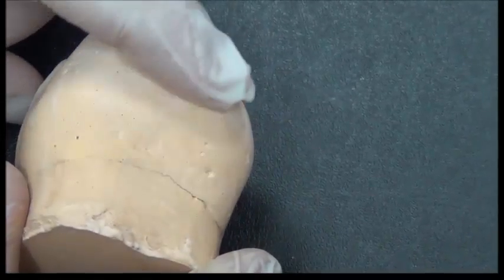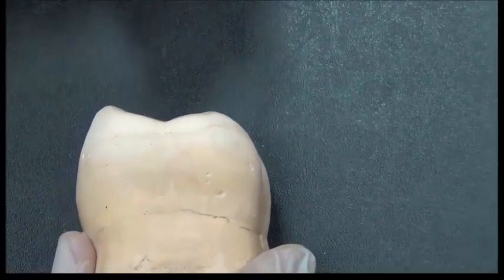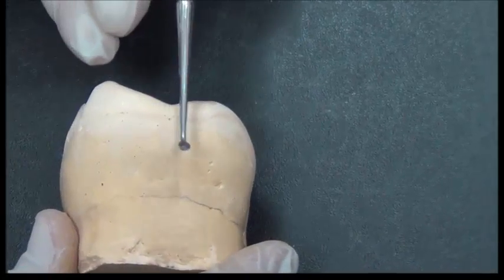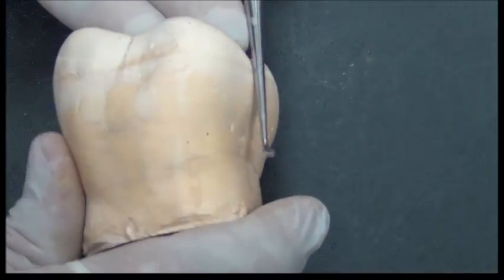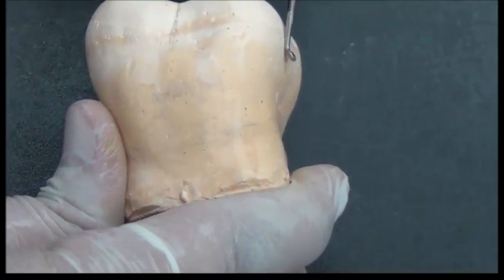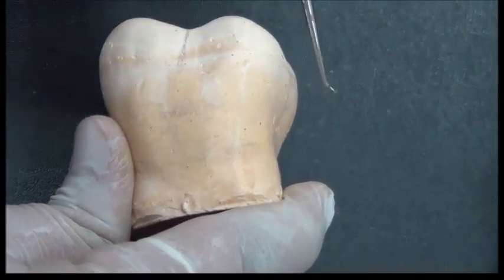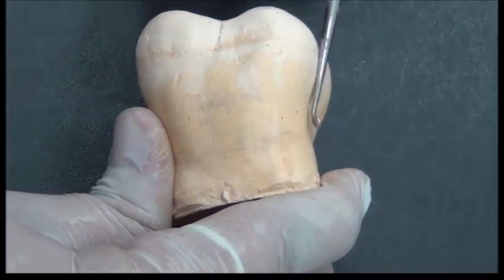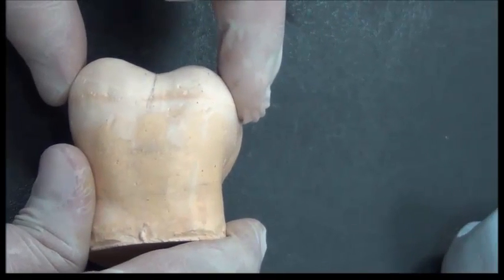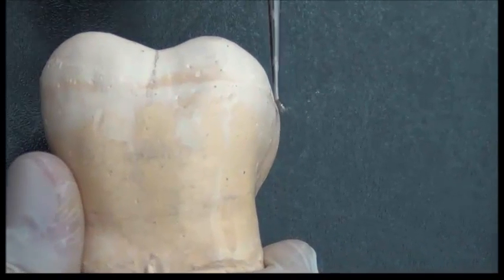These natural surfaces mean that if I'm going to be crossing over this component, this is the proximal side, for example, and a metal component wants to go in and out, if I look at it from the side, I could come in and out from this side, I could come in and out in this direction, and from this direction, and from this direction. So multiple directions to go in. This makes it not compatible for the tooth health or the dental health. So I need to use only one path of insertion and removal.